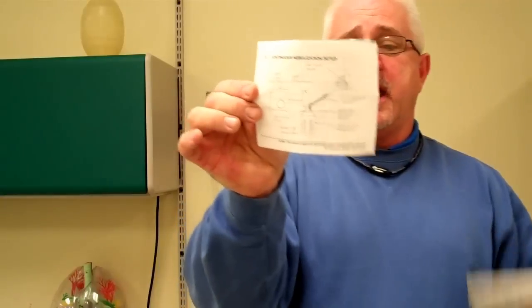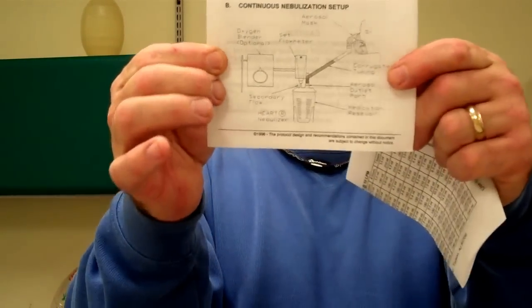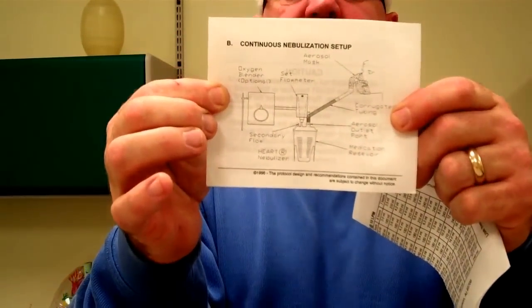Your large heart nebulizer comes with some inserts and I think it's extremely important that whenever you use a piece of equipment that you're not familiar with or you haven't used on a regular basis, there's nothing wrong with looking at the instructions. That's why they're there. This one actually gives you a small little picture as to how you're supposed to set up the device.